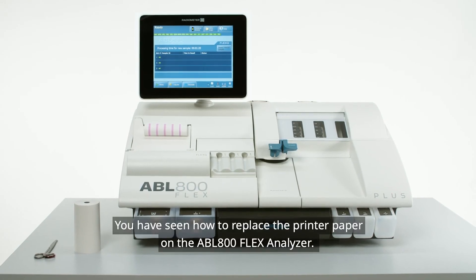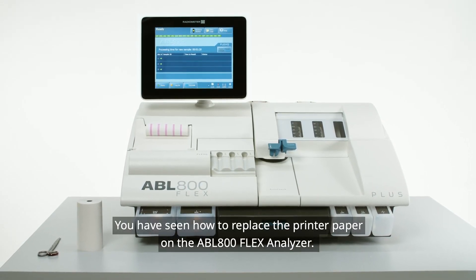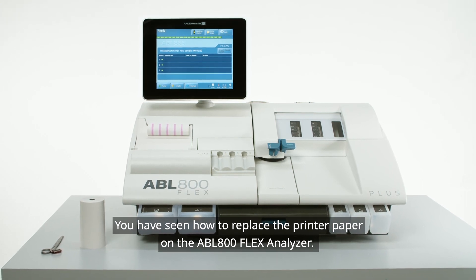You have now seen how to replace the printer paper on the ABL 800 Flex Analyzer.